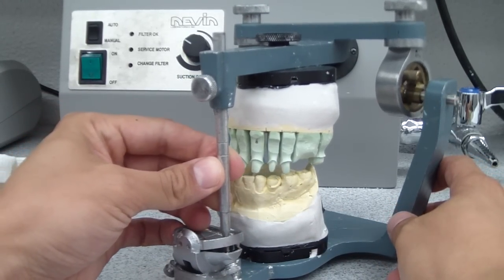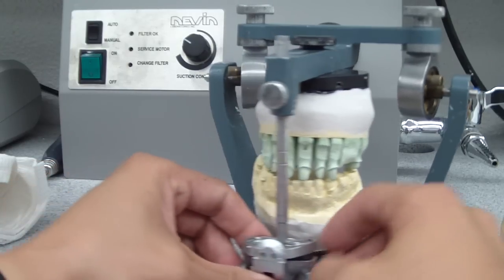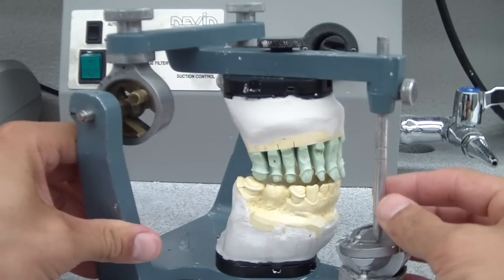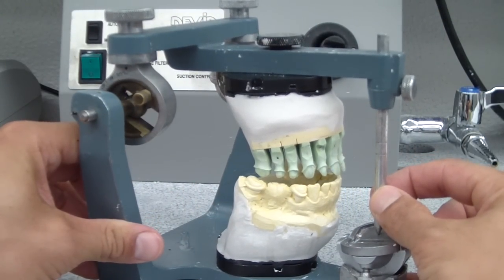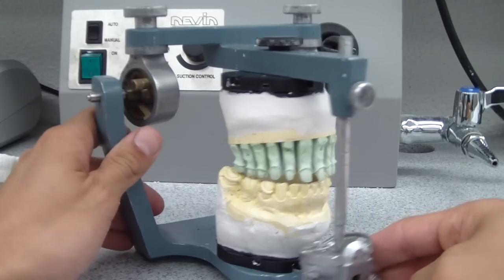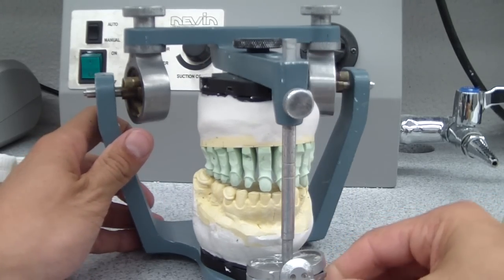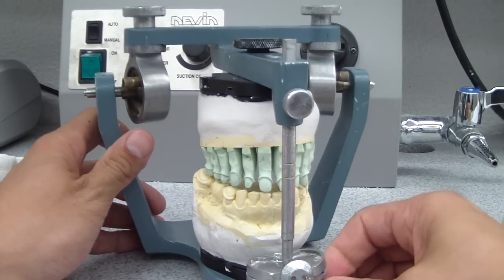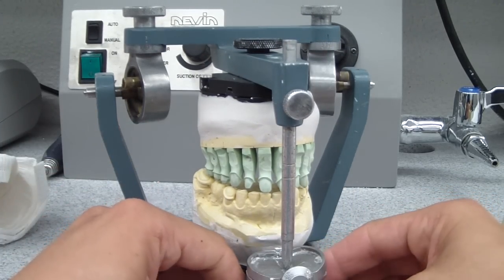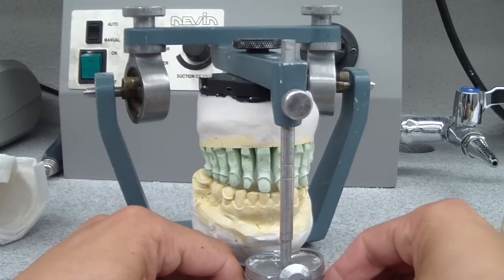Say for in this example, now I've established some sort of lateral excursive guidance just using the table. But what if I'm happy with my provisionals that we have in this patient's mouth and I want to utilize that guidance that I've established for him?